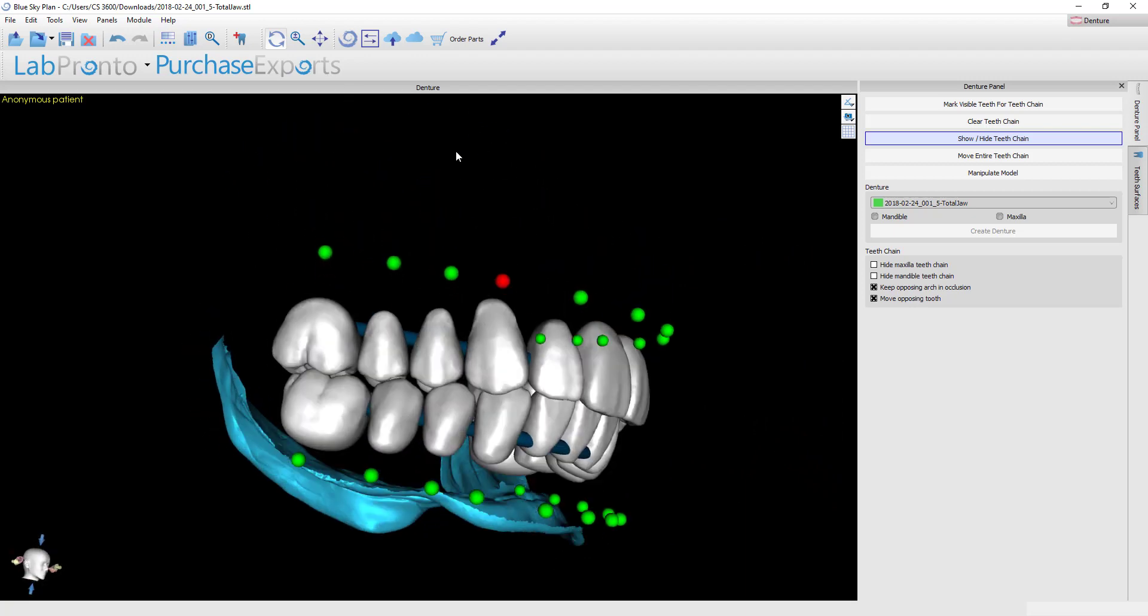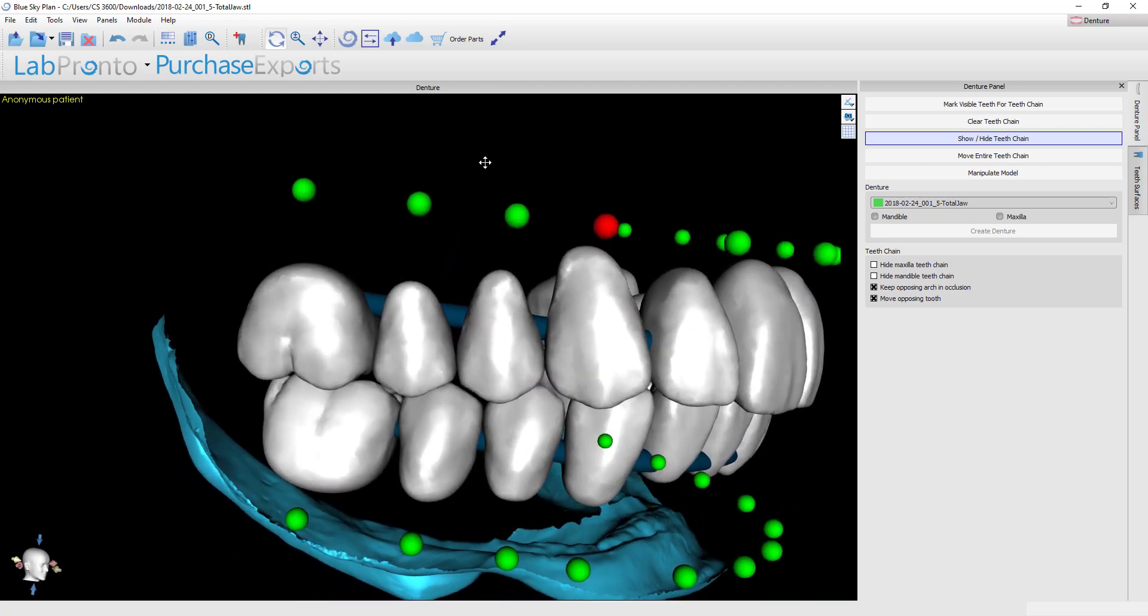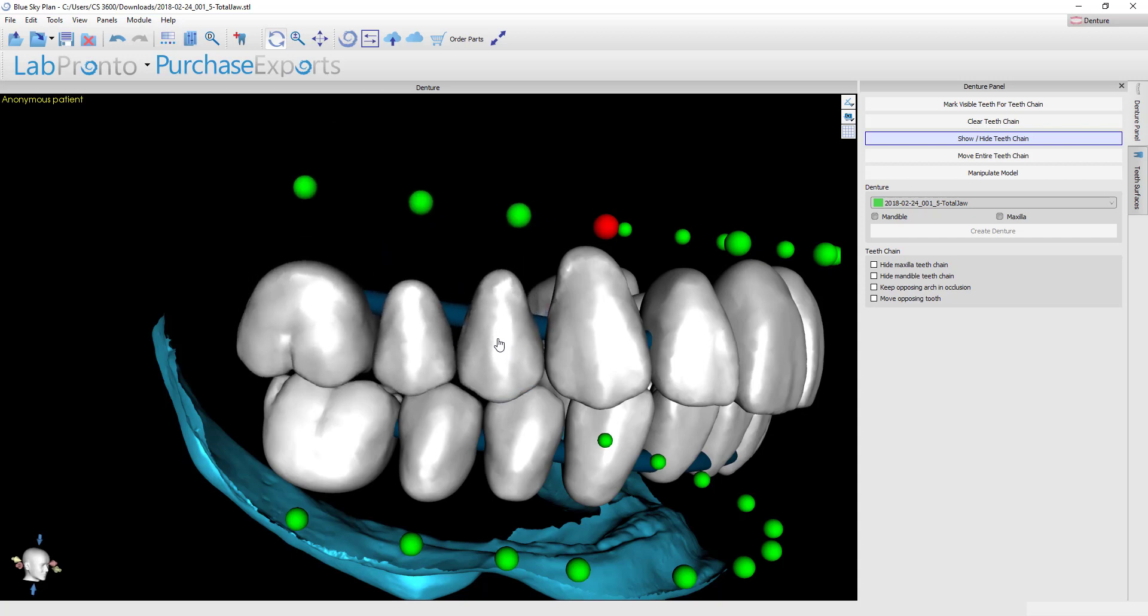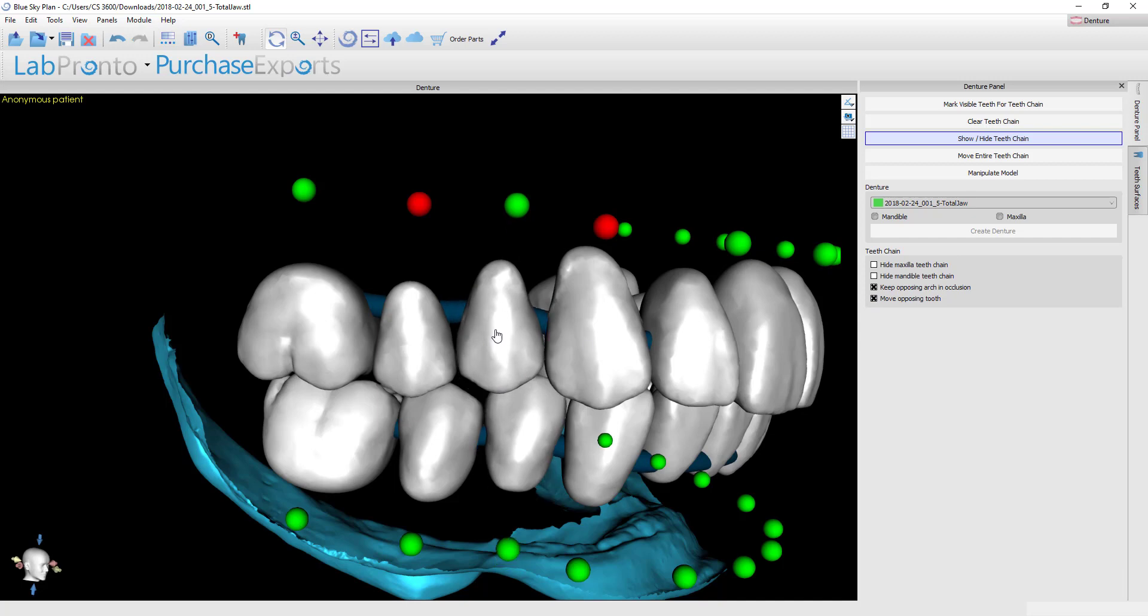Now although I don't need to do it in this case, I do want to show in this tutorial how you would do individual tooth movements should you need to. Let's suppose that you were setting just maxillary teeth against a lower natural dentition. You're always going to have to do a bit of tweaking on the occlusion to get those correct. We could hinge the entire quadrant if needed. You could hinge individual teeth, so if I lock the tooth on either side I could now hold shift and move a particular tooth up and down. You could also do that maintaining the occlusion as you see right here.